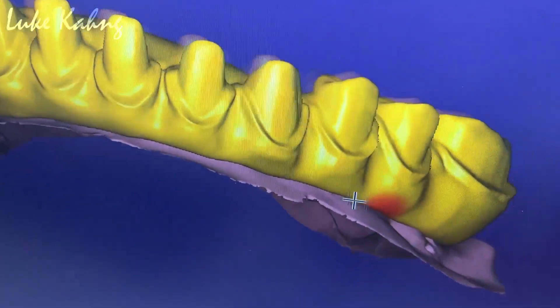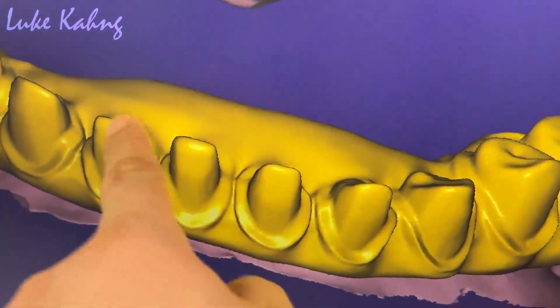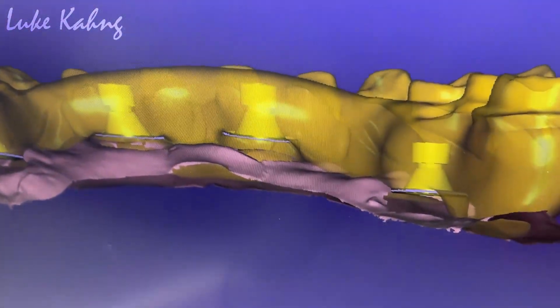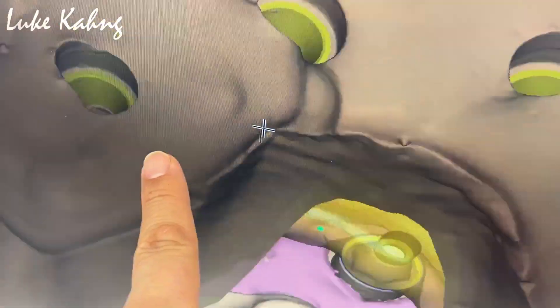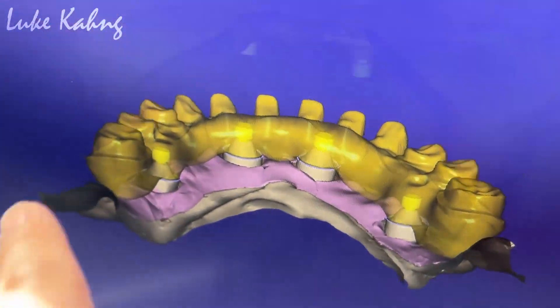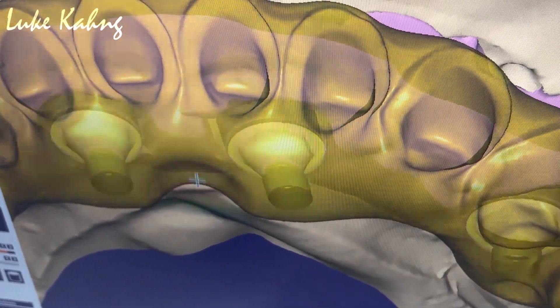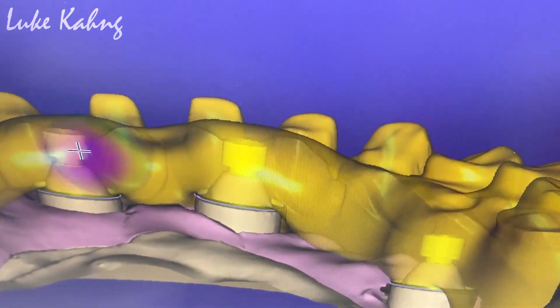You said concerning about the lingual — here is the problem. That's our issue right there. That's where the screws are, so it's a problem — it's going to be a little tall there. You can bring it down here, understand — a little bit of a wave kind of. Yes, yes — the other one too, kind of a little more wave. So we're trying to make this as thin as possible — I don't want them to show too much. So that's our design — we're going to go to nesting and then milling.